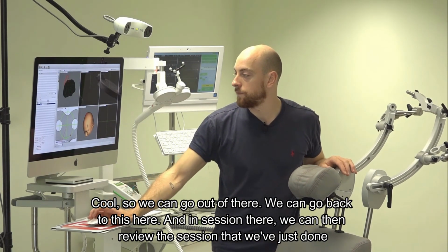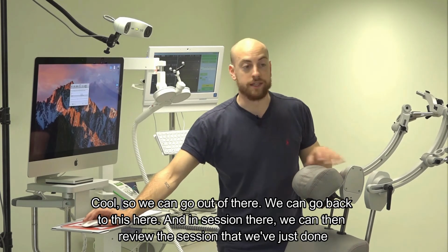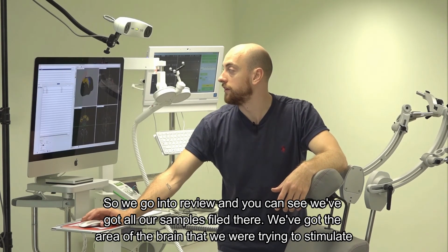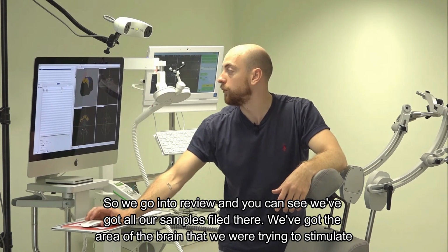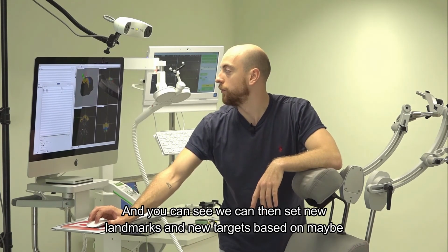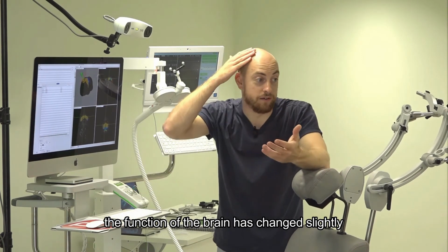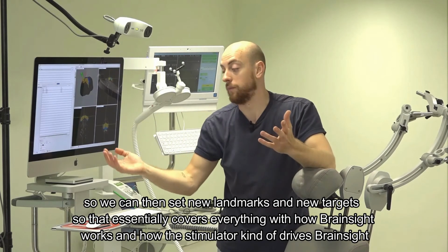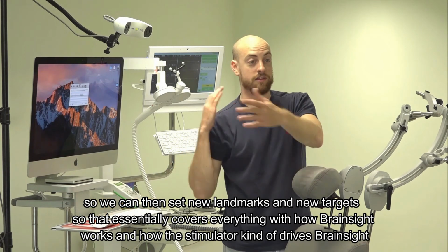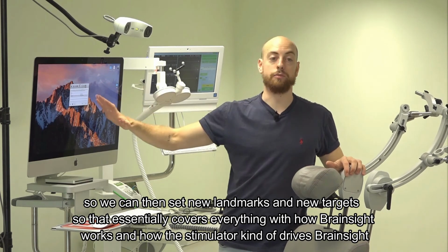So we can go out of there. We can go back to this here, and in session there, we can then review the session that we've just done. So we go into review, and you can see we've got all our samples fired there. We've got the area of the brain that we were trying to stimulate, and we can then set new landmarks and new targets based on maybe the function of the brain having changed slightly. So that essentially covers everything with how BrainSight works and how the stimulator drives BrainSight.